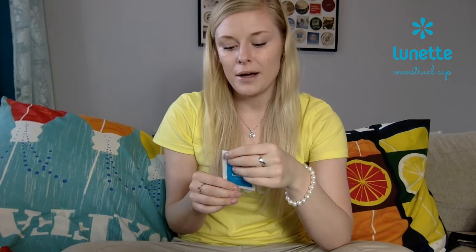So these are good. With these, you don't have to boil it. You can also get from the pharmacy, for wounds and stuff, a sterilizing liquid. I don't know the correct word, but that's okay too — they kill the bacteria also.